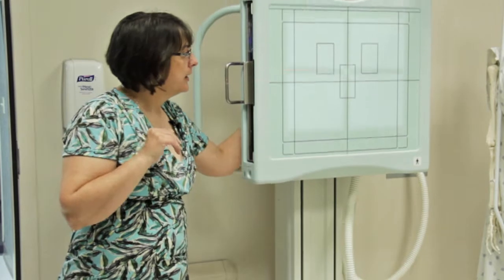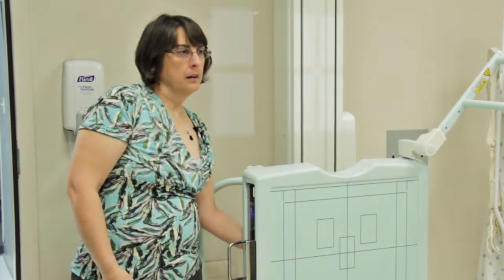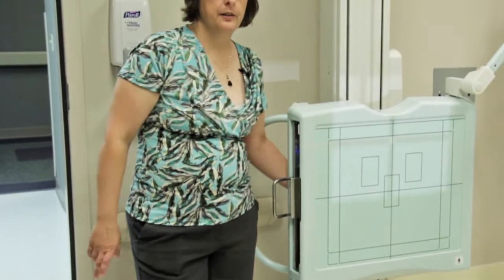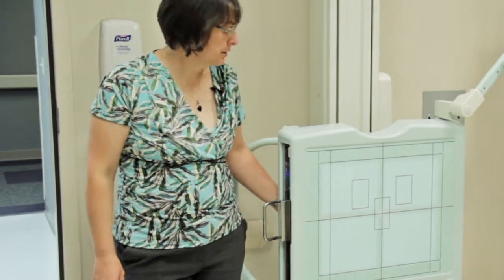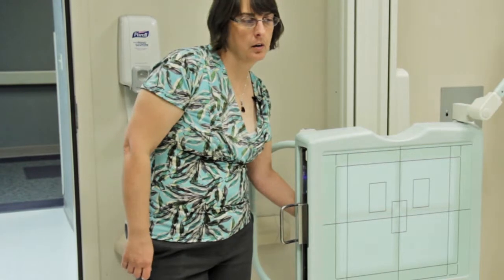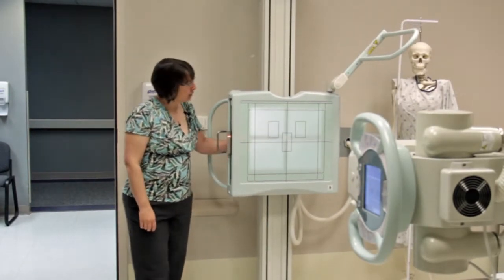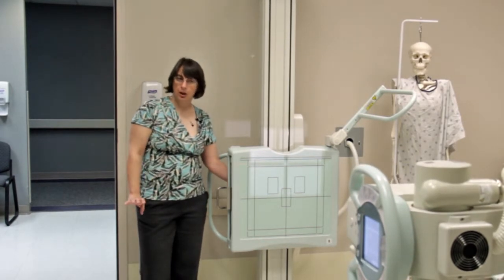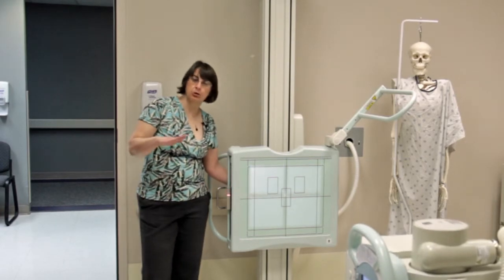Note that when you go low — say for a standing knee — once you press the auto-track button, if you hear a steady beep you need to let go, double-check that it's clear underneath the tube, then press again. It's going to go much slower once it gets near the floor — that's a safety feature to make sure you're not squashing anything underneath the tube. Once it's cleared, press and hold, wait for those three beeps, and you're lined up. From another angle: when you press and hold to auto-track and get a long steady beep, let go, check clearance, press again — it'll go about half speed but you'll get the same triple beep saying it's done and lined up.